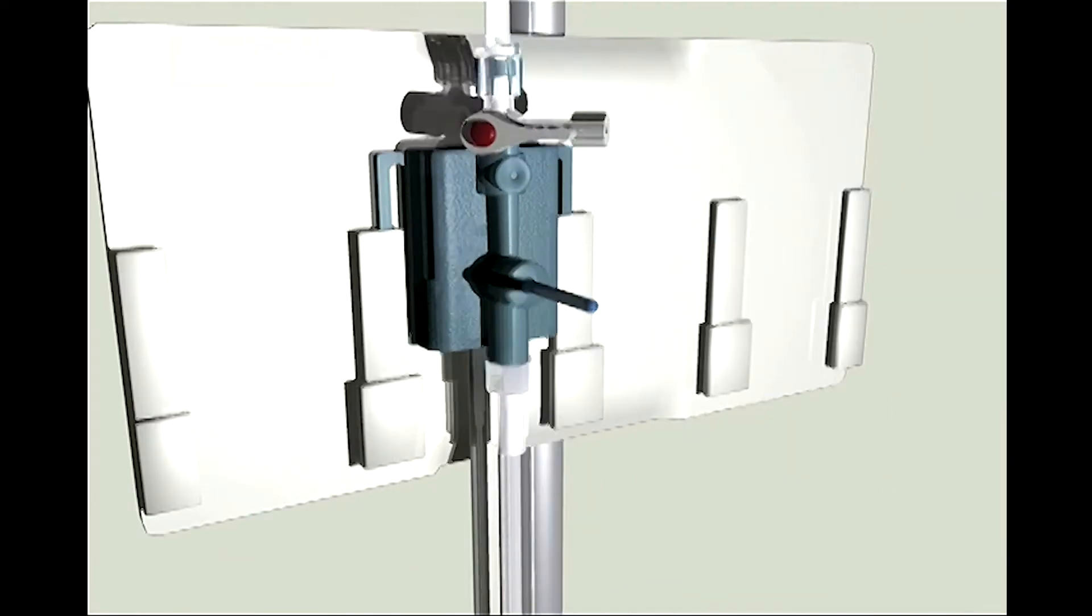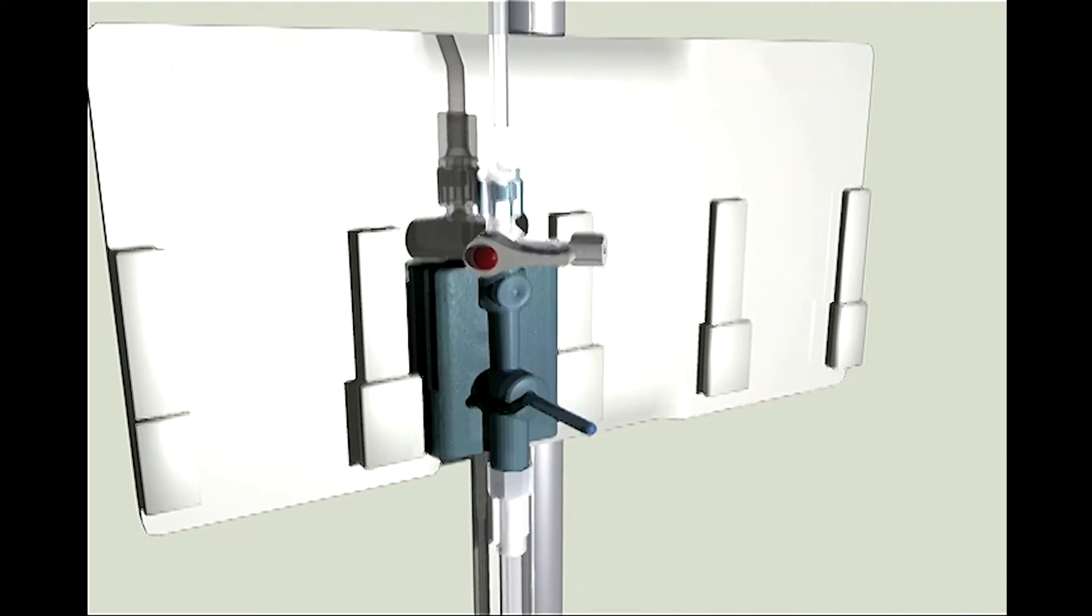Step 2: Insert the TruWave Transducer into a mounting backplate that is secured on an IV pole.